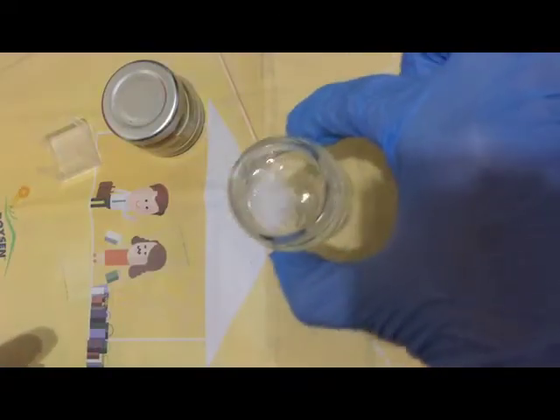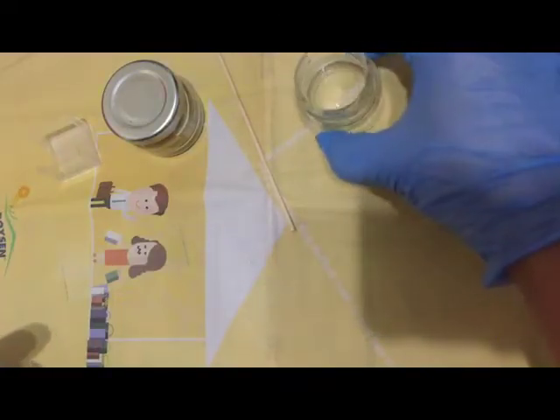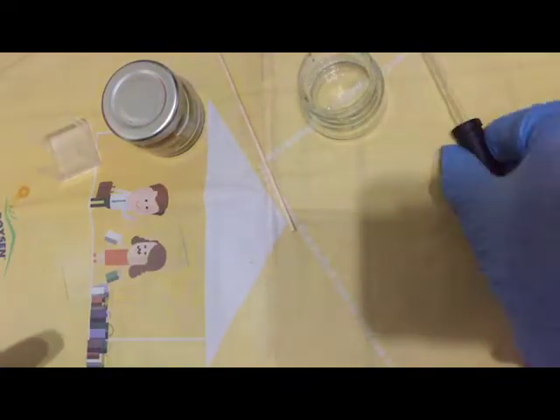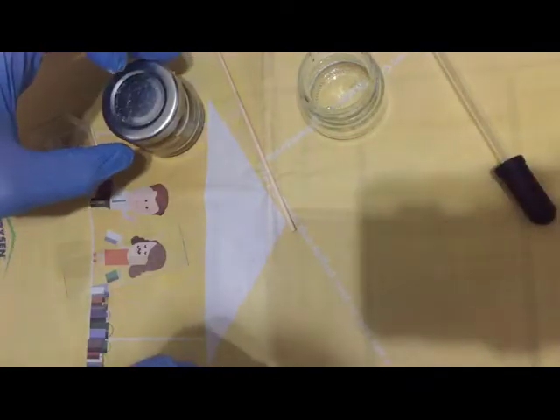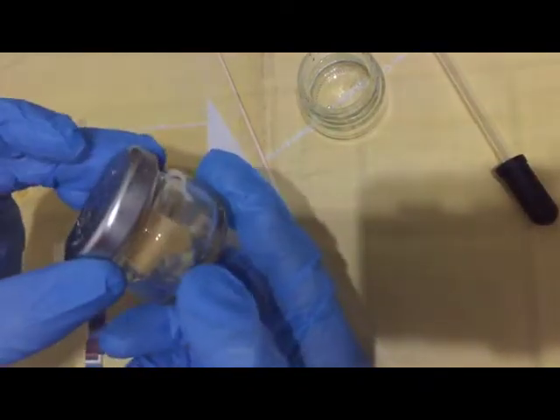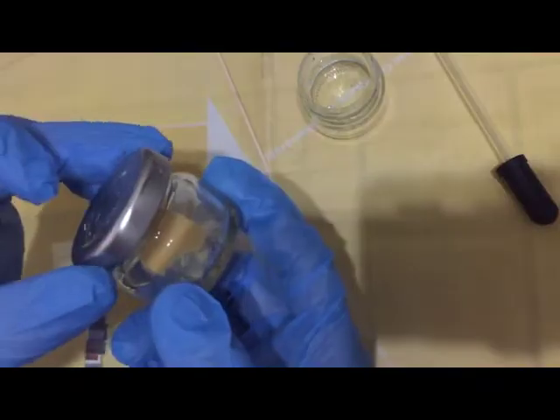Applicator sticks, plain NSS, and you need your dropper for your NSS, and of course a freshly prepared stool sample in a sealed container.